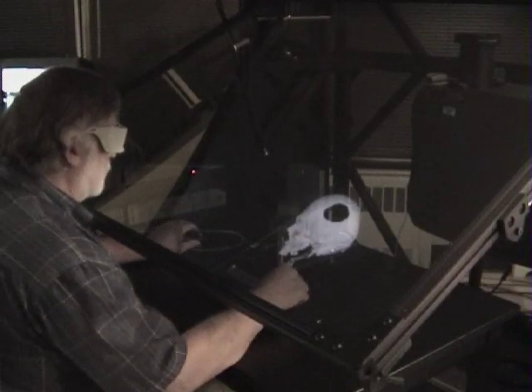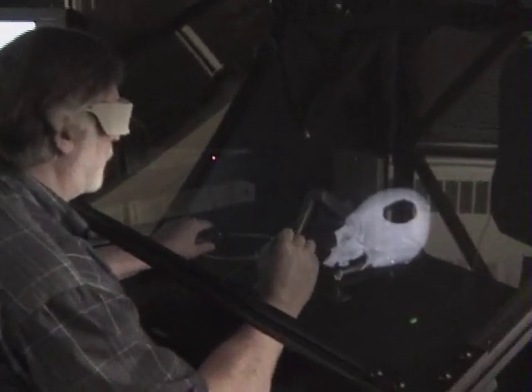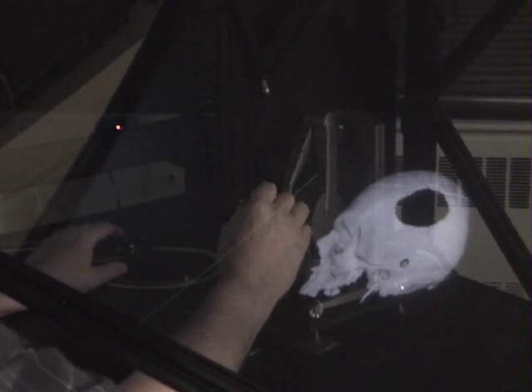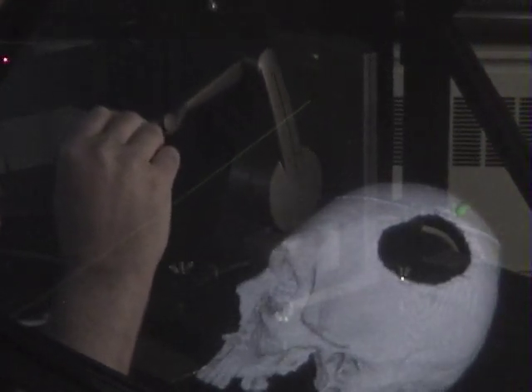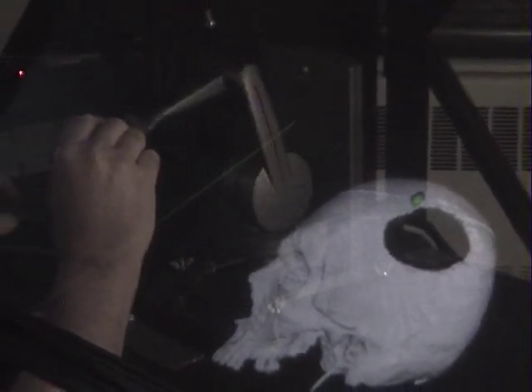The other tool I have is a stylus attached to a haptic system, or force feedback system, which allows me to literally touch. As you can see, the little green ball represents the head of the various tools that we have at our disposal to work on the design of the implant.